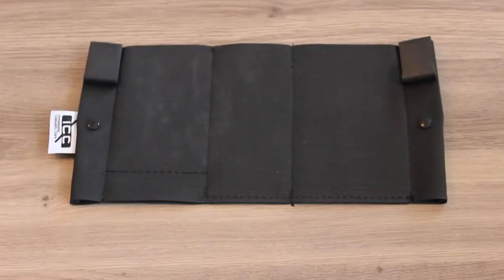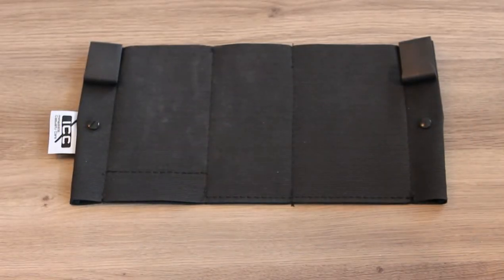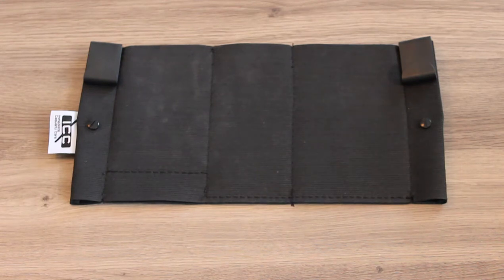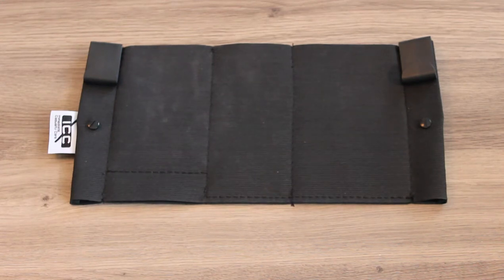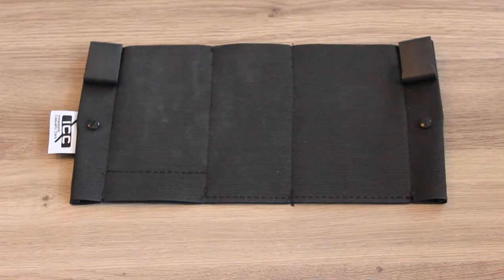Today I'm going to be reviewing the Mini Med inside the waistband flat, a non-metallic organizing pouch by Immediate Casualty Care. I purchased this from their website, immediatecasualtycare.com.